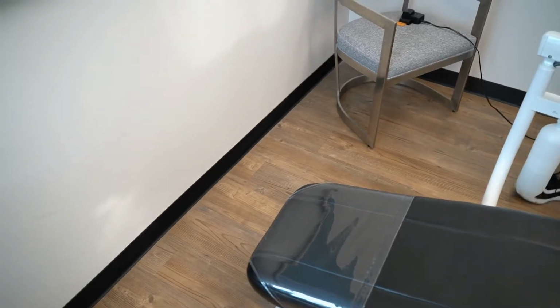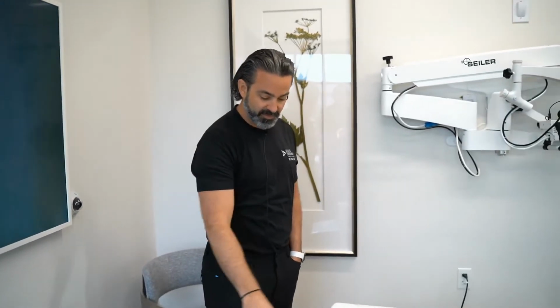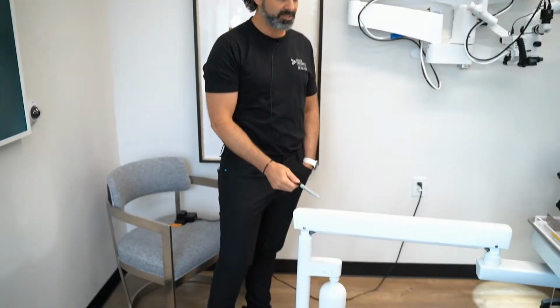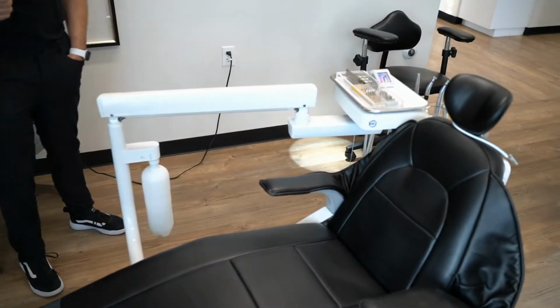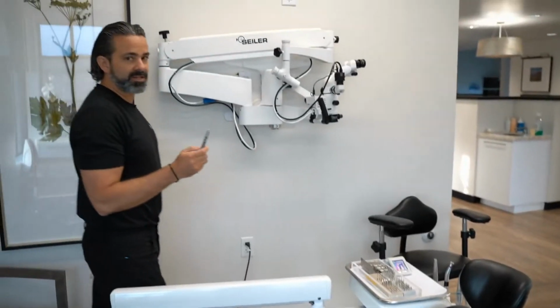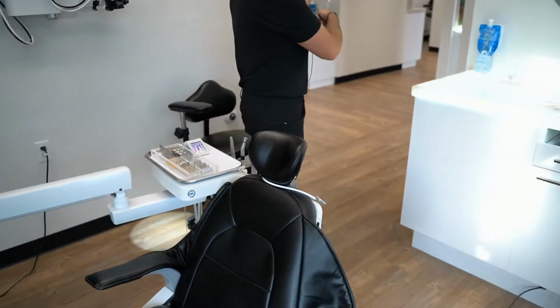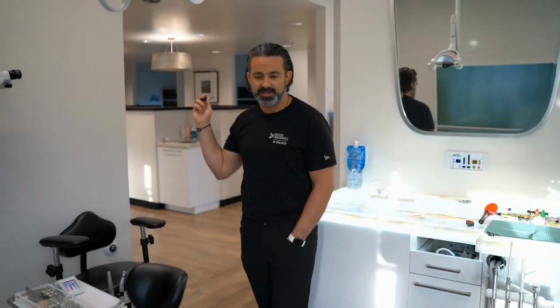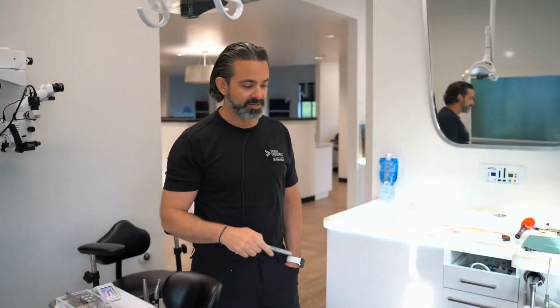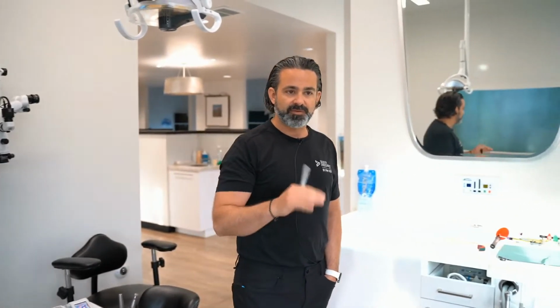I've done it from the ceiling, and I've actually done it from the floor right here, almost like where this arm is. People get creative. There's a lot of different configurations, but I'll tell you the one thing to learn from that. One is vibration. If you have a floor and there's vibration as you walk around, and we have a lot of traffic, right now it's early morning, but as people come in throughout the day, because we are still practicing, we have 2 other doctors here, you don't want a lot of walking. If you're on the floor, inevitably you're going to feel footprints as people stand, especially on a hard surface such as what I have here.